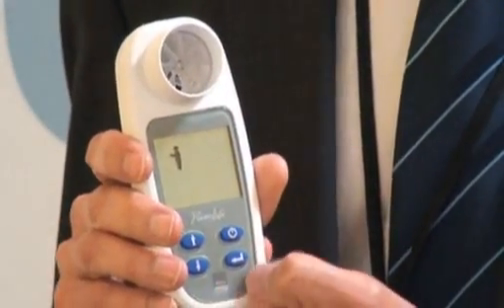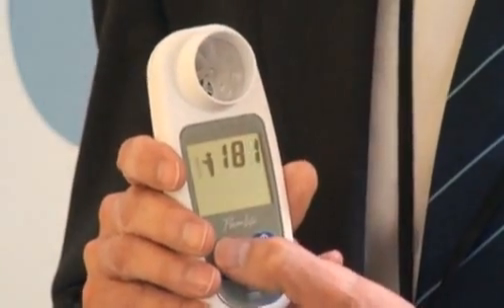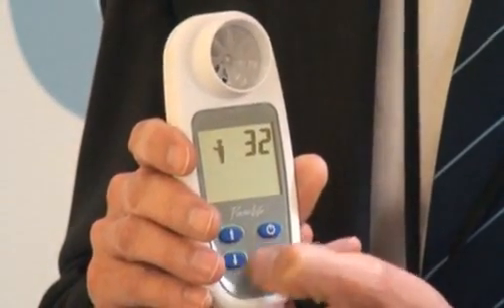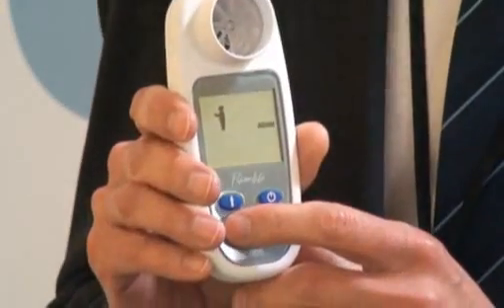We just enter the details — so male — we put in the height, then put in age, and then ethnic correction between various different groups.